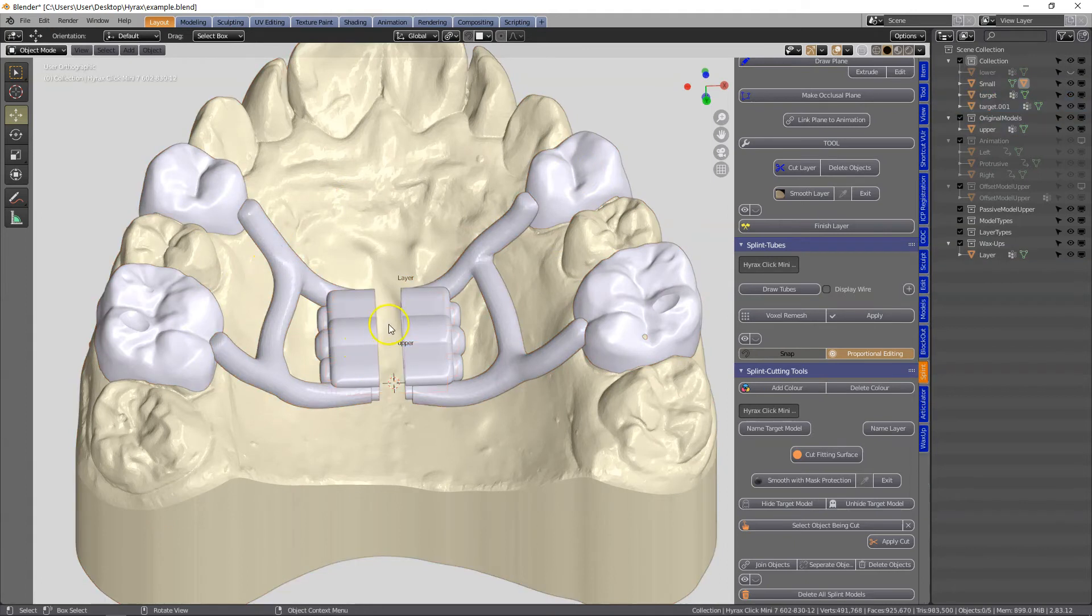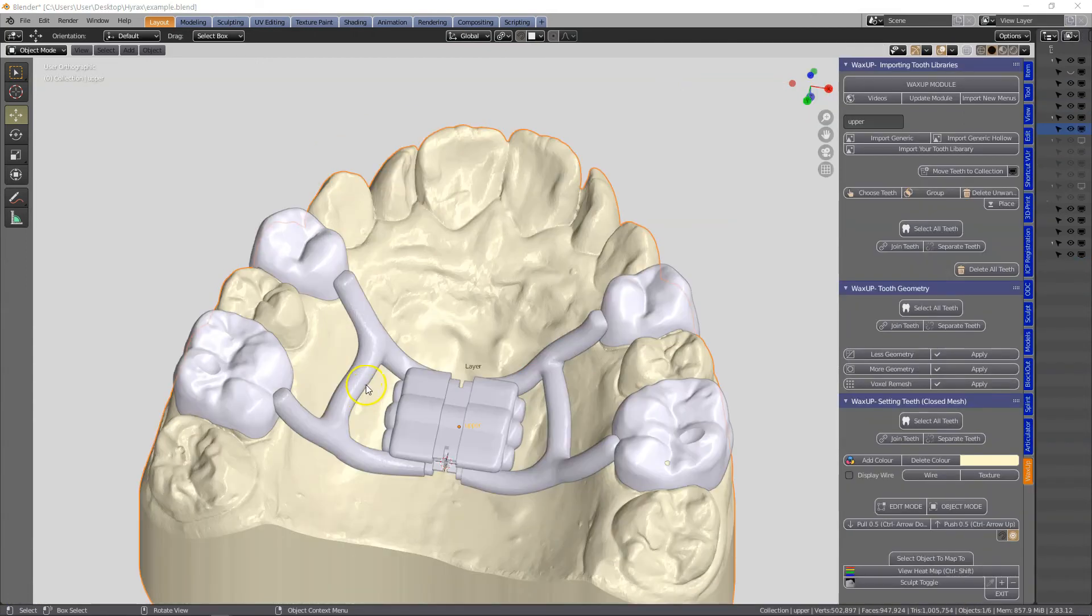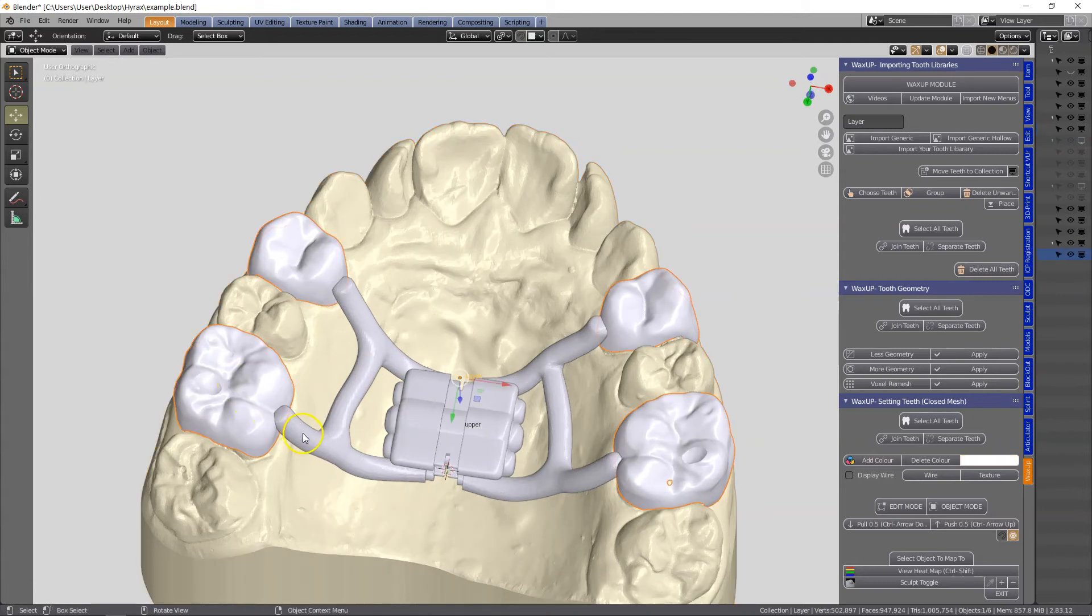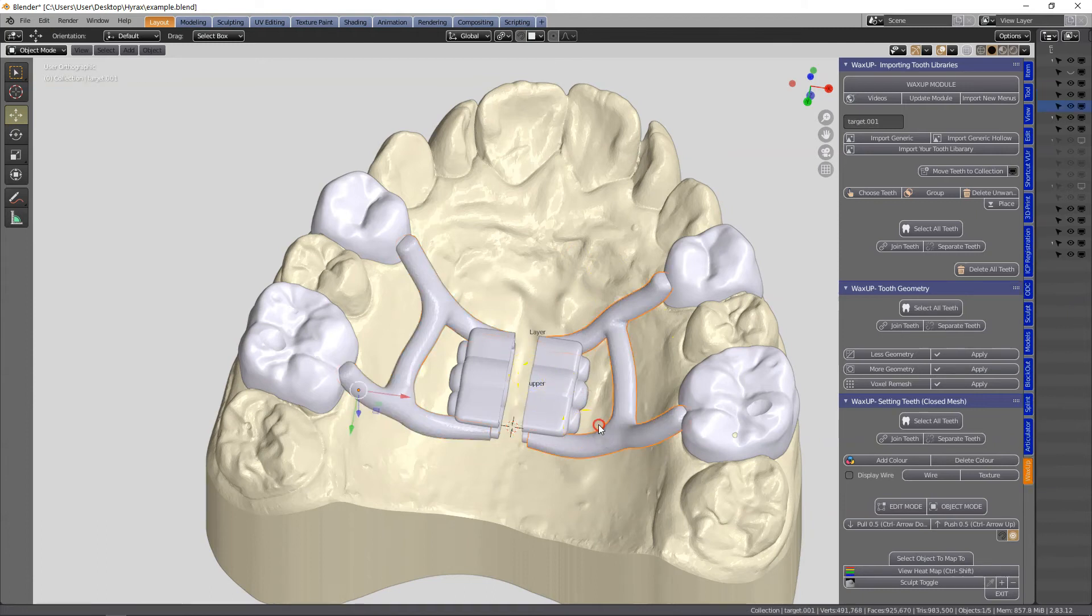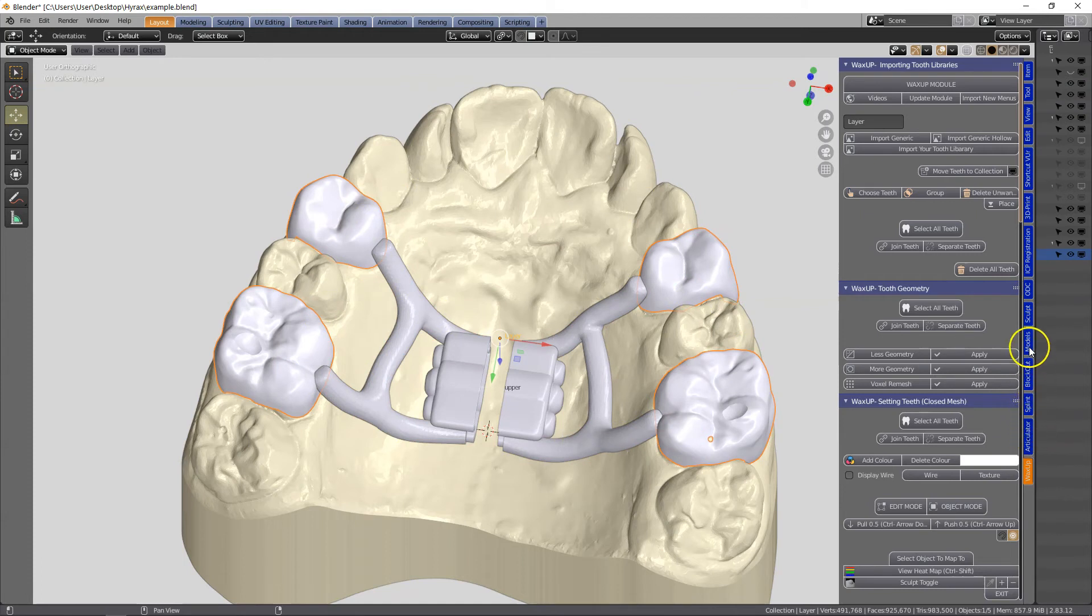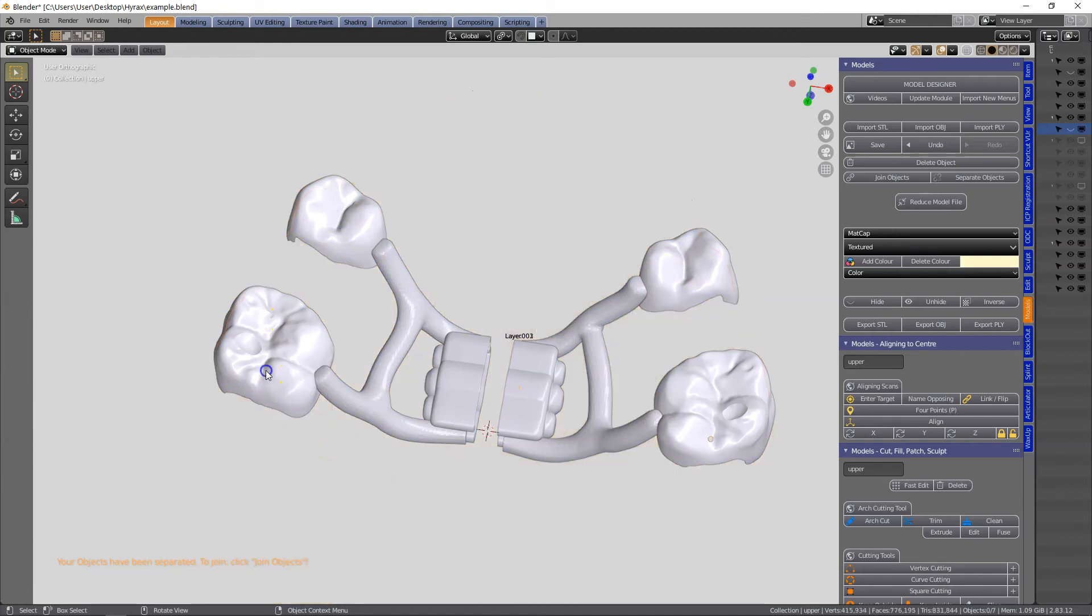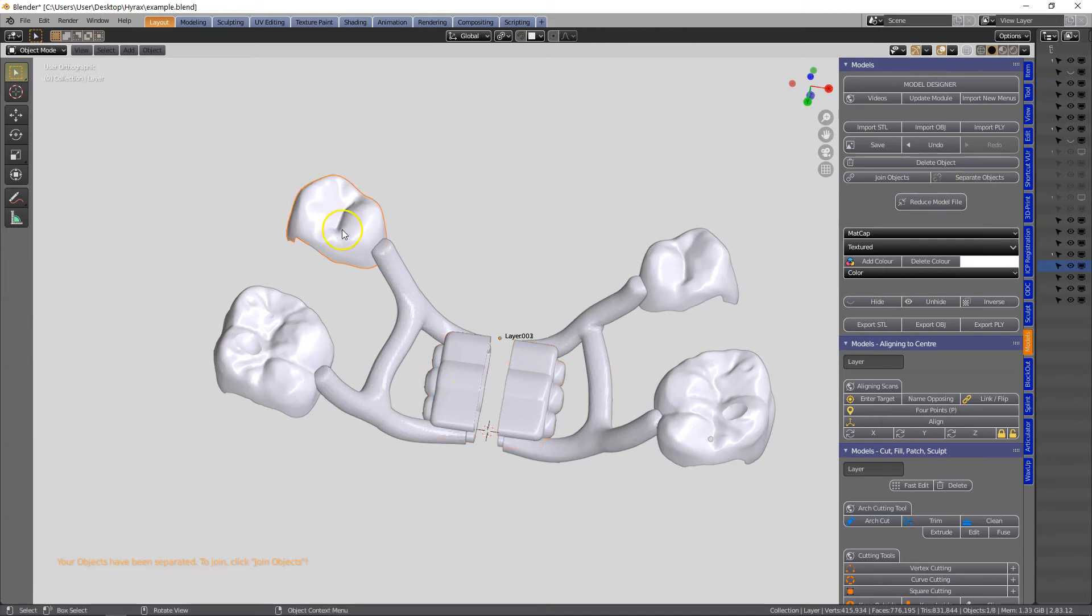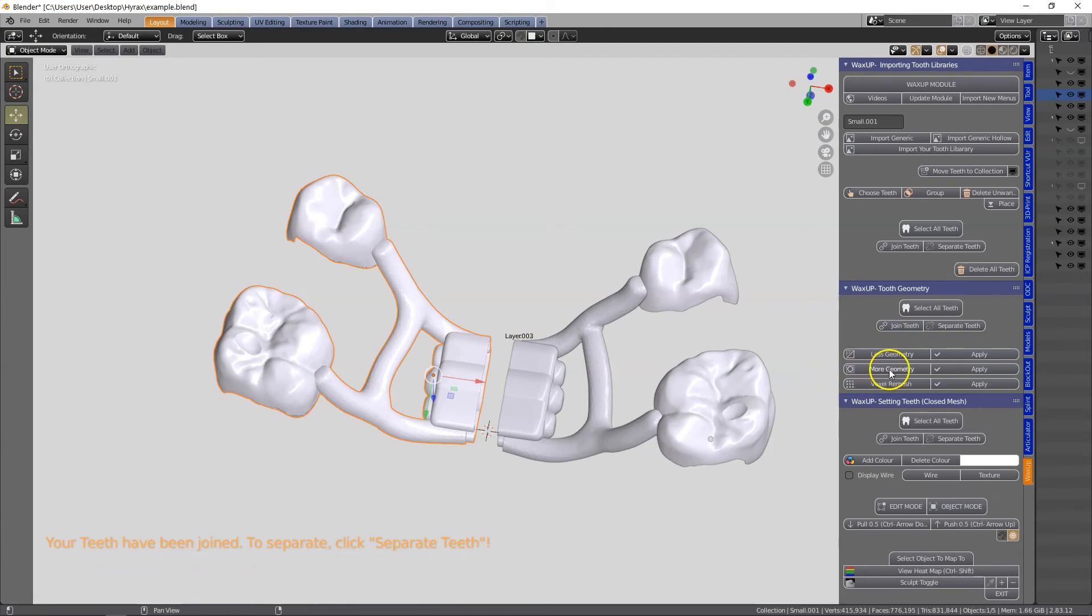Now it's important to note that with laser sintering we cannot export multiple objects intersecting each other - we need to make one mesh out of all of the objects. So how do we do this? I'm going to separate these objects out, select the objects I want and we're going to voxel remesh them. These are joined in the model designer, we're going to separate these and then select the ones that I'd like to keep. Join them up. So the mid section is still joined, so we need to separate that, join these up - ctrl J on the keyboard, that's a shortcut, or just click on join. That does the same thing and voxel remesh it.